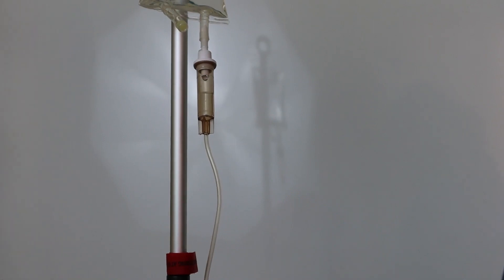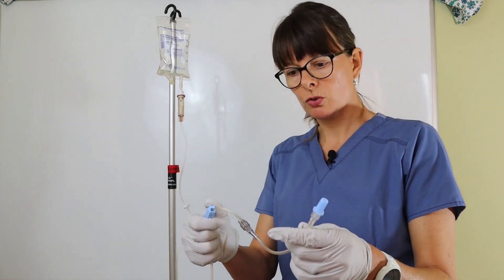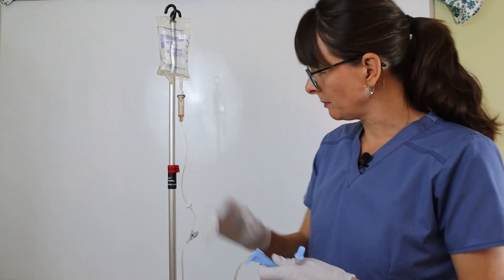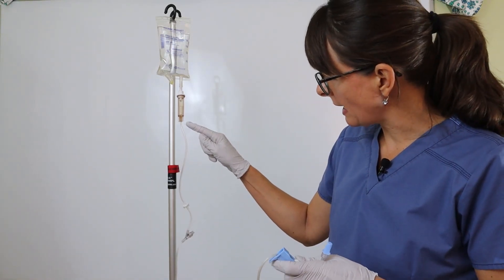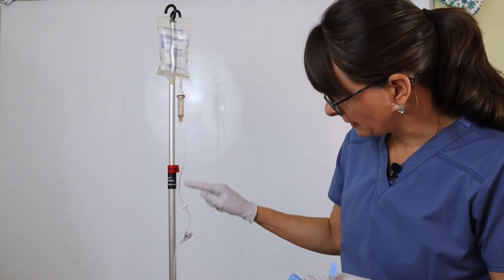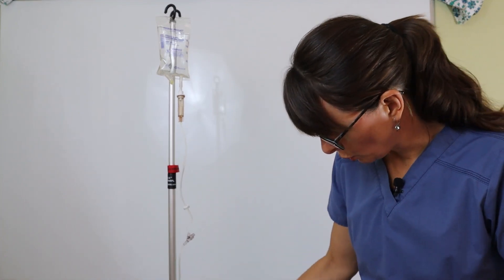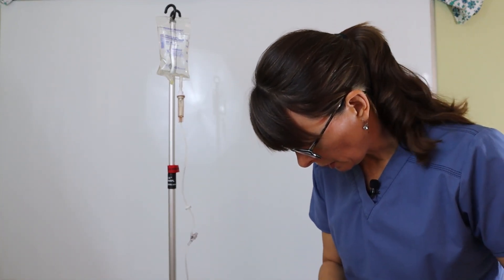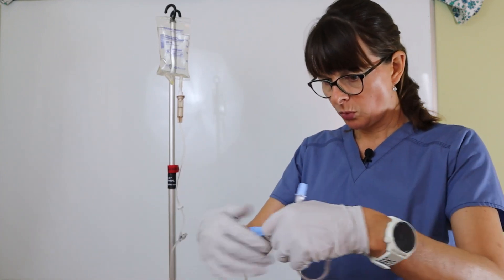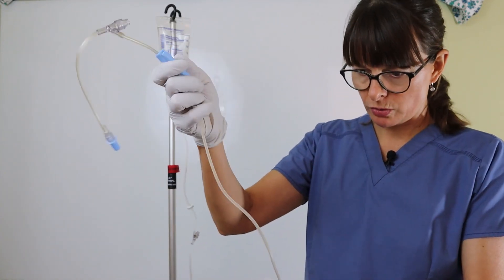I can carefully open up my clamp. I am going to carefully open up the clamp, and I can actually track the fluid as it's coming through the tubing. Once it comes to the clamp, it's going to slow down a little bit.